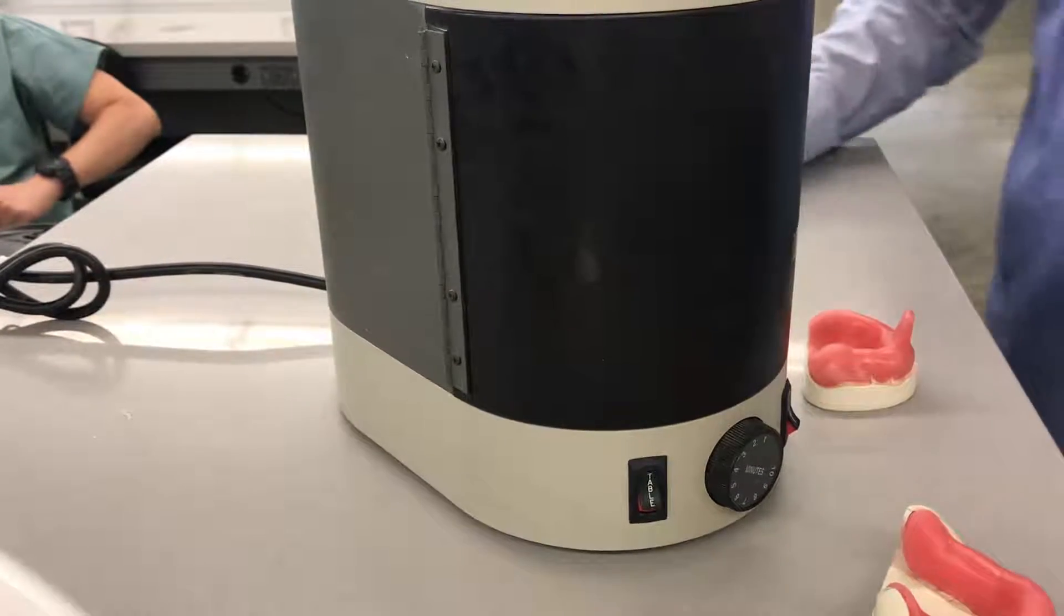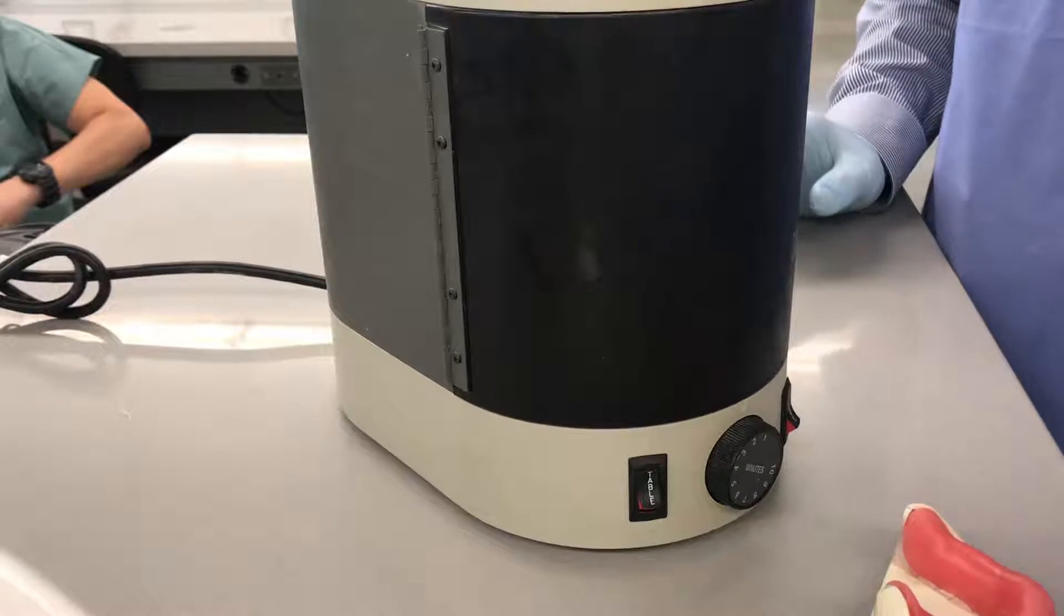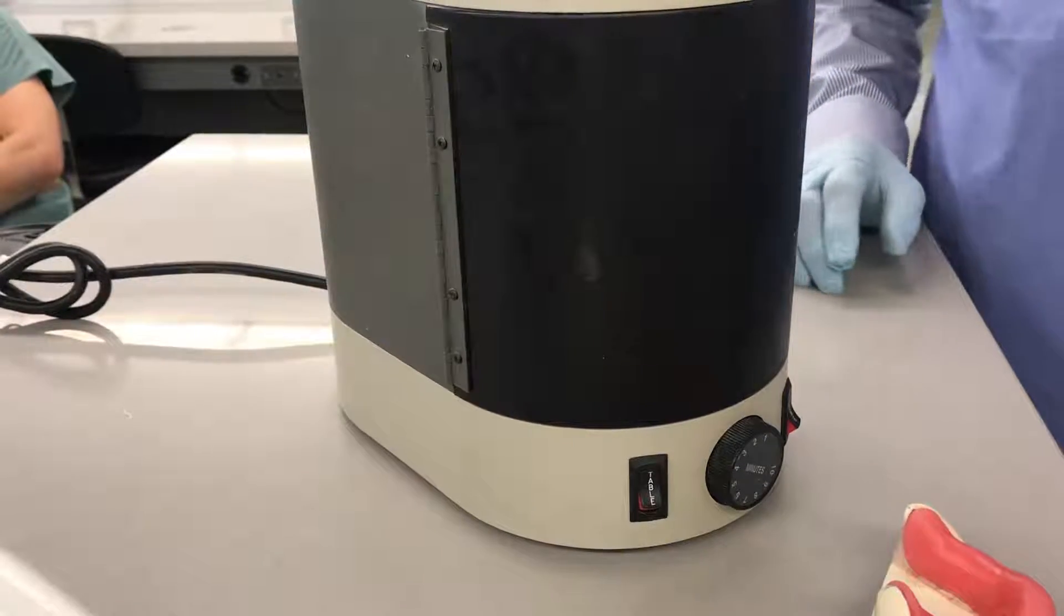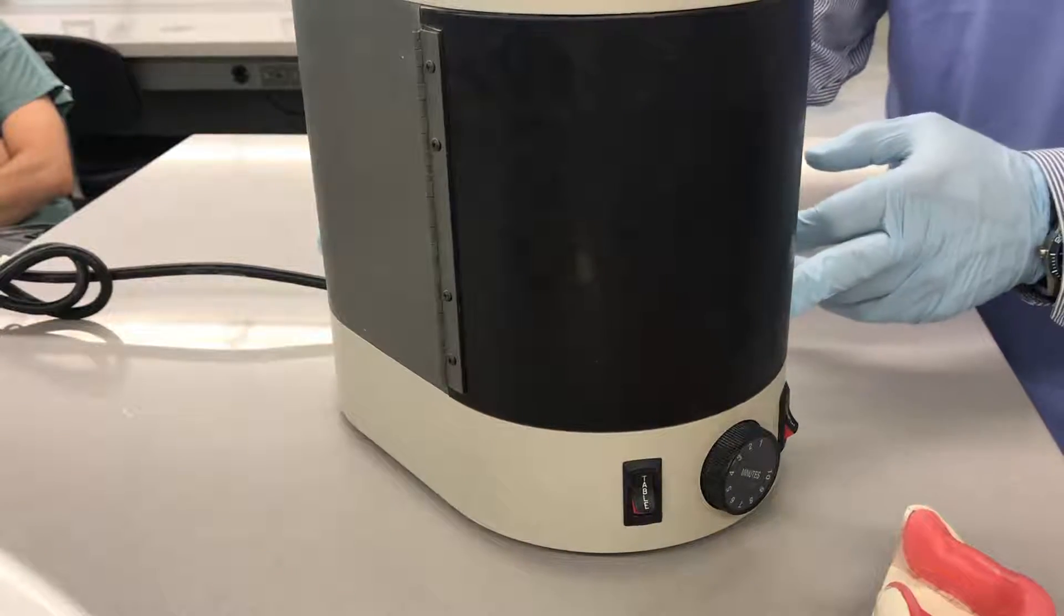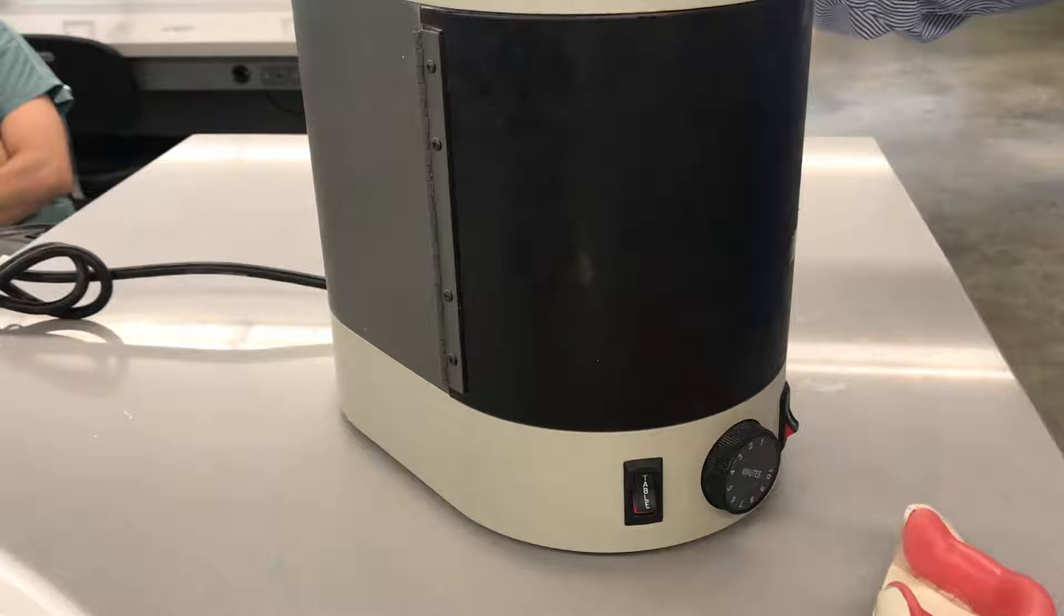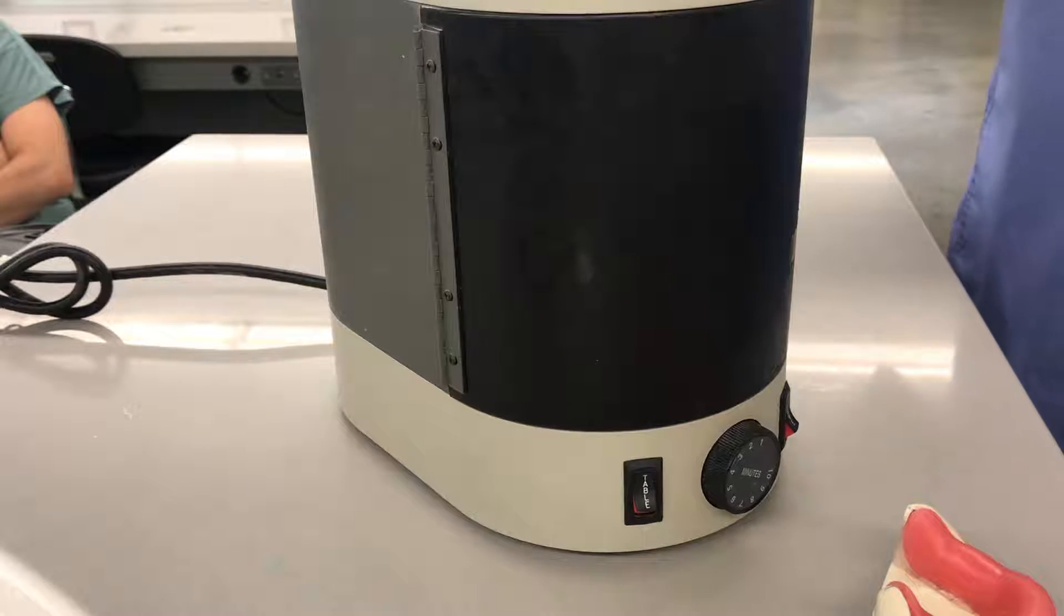Okay, so when we start curing our trays, we're going to use this unit here. This is made from Dentsply, but obviously you can find many others in the market.